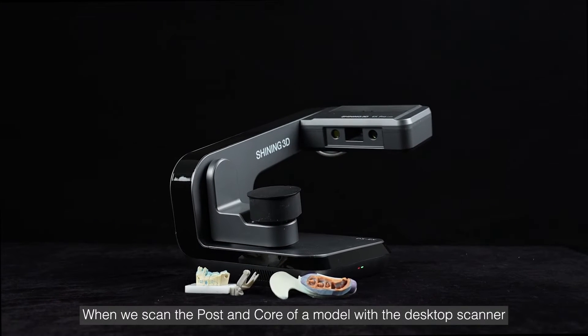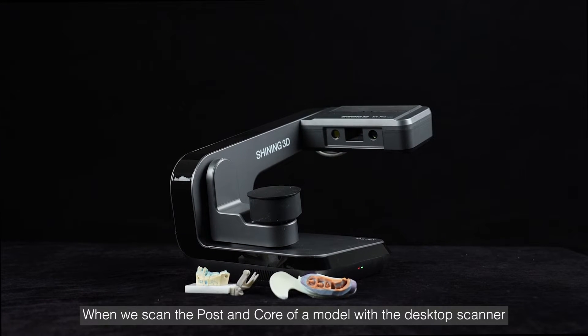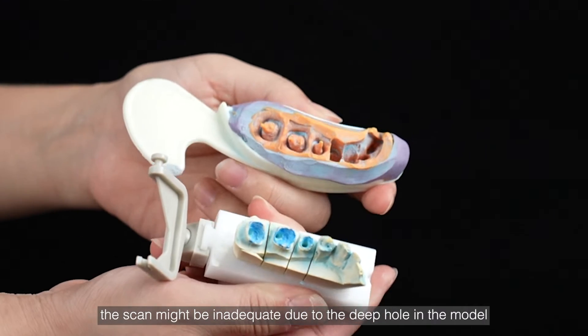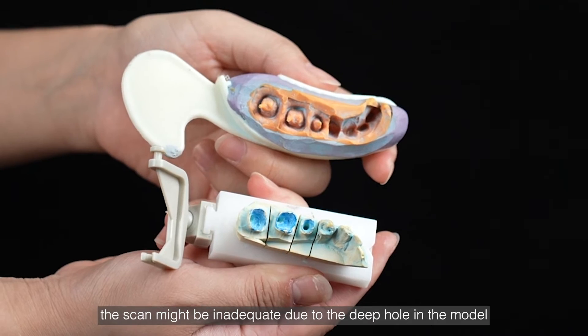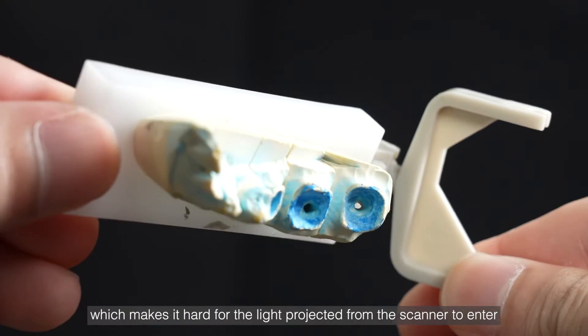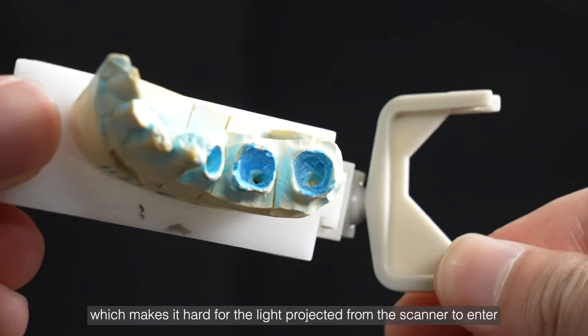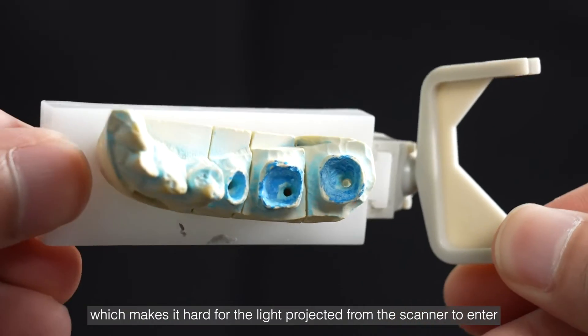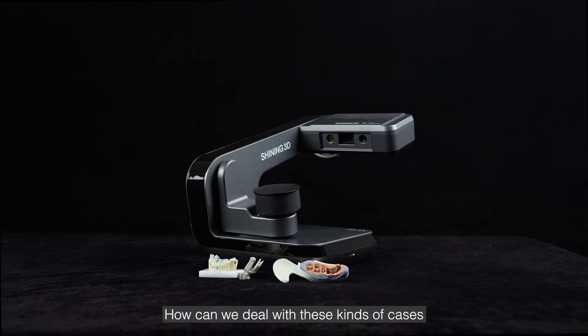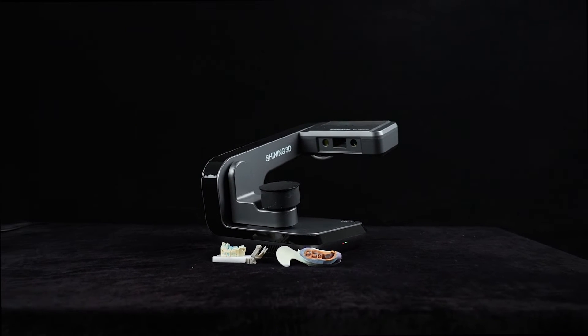When we scan the post and core of a model with the desktop scanner, the scan might be inadequate due to the deep hole in the model, which makes it hard for the light projected from the scanner to enter. How can we deal with these kinds of cases?